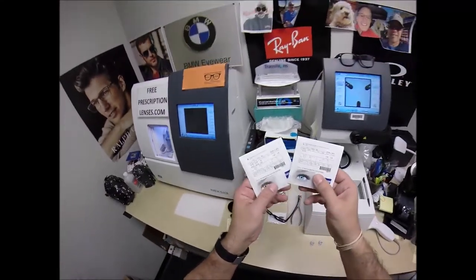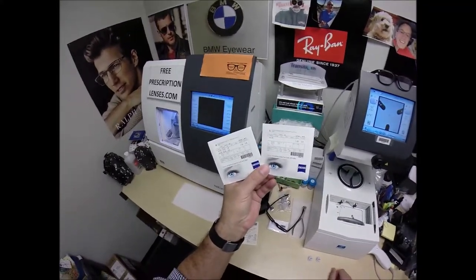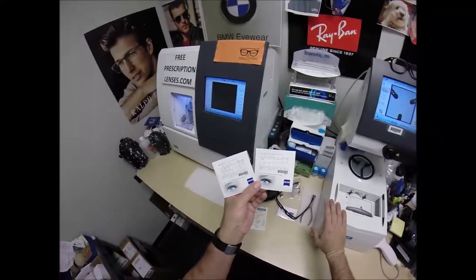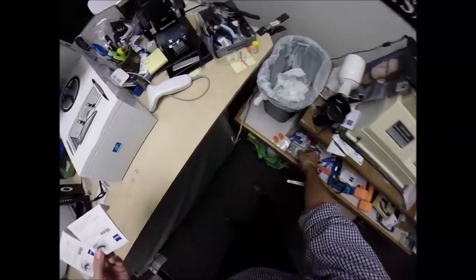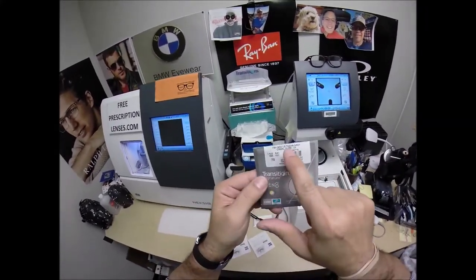I made an executive decision. This is a first in all my videos. I've been an Essilor man for years and years, but the Zeiss sales rep came by. The actual person who trained me how to cut lenses — his daughter died tragically at age 13 — and he is now the Zeiss rep. He gave me a shot. I got a pair of lenses and I really like them. The other nice thing is with the single vision lenses you get the packets from Essilor that say Transitions Generation 8 lenses with Crizal Alize.